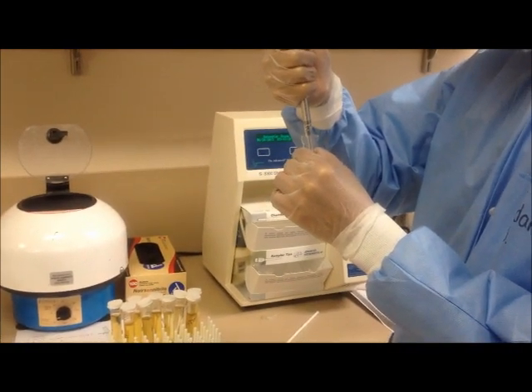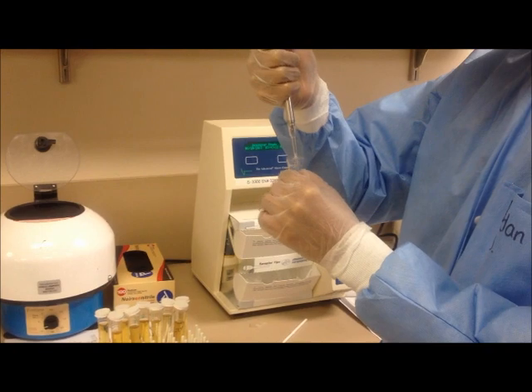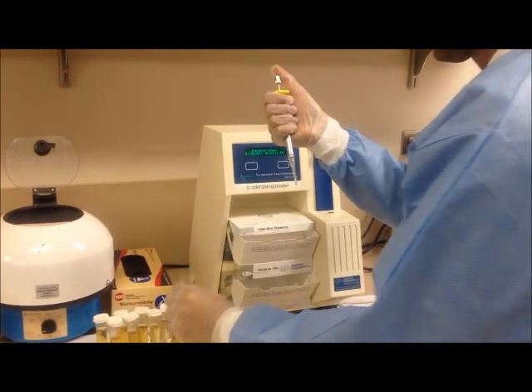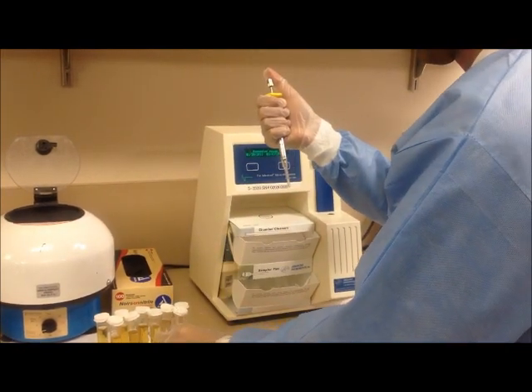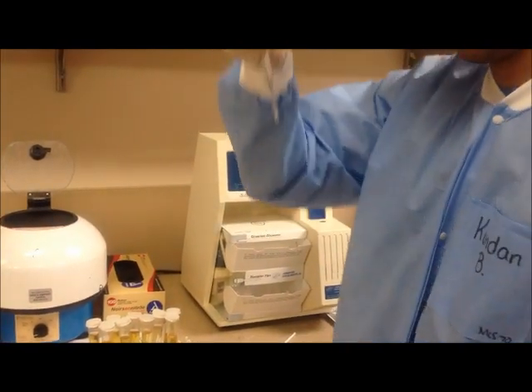Visually inspect for the presence of air bubbles, and if there are any bubbles present, load the sample again.